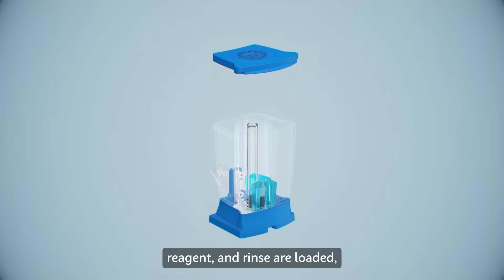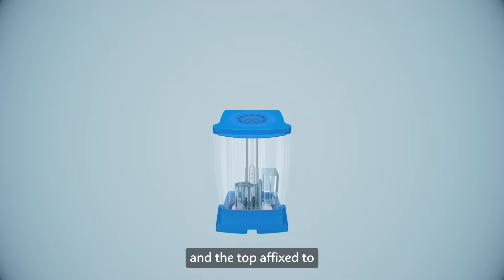Reaction beads, reagent, and rinse are loaded and the top affixed to complete factory assembly. The cartridge is ready for use.